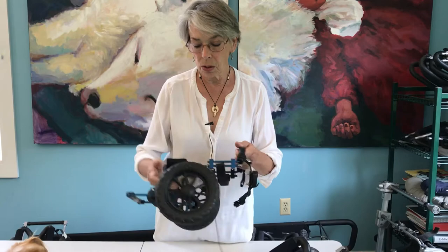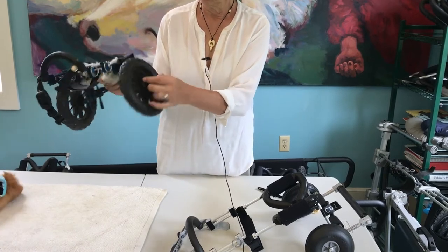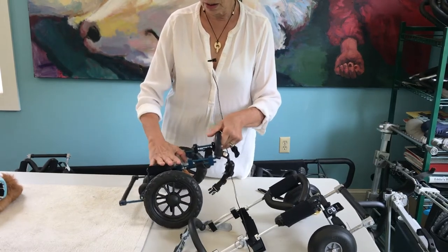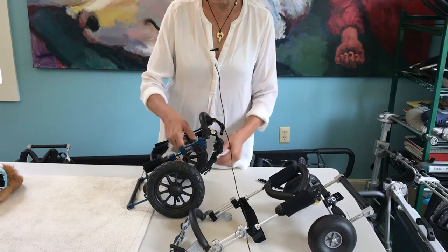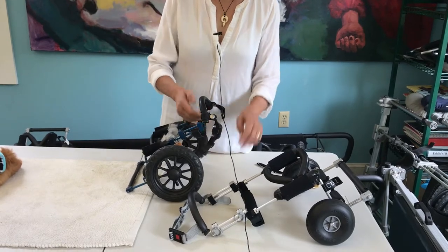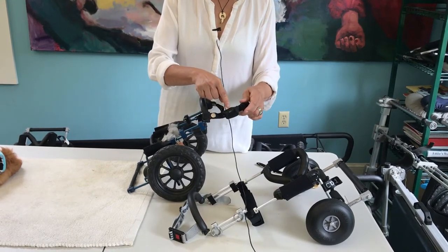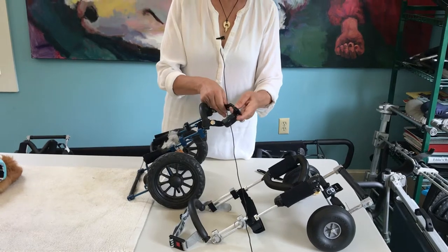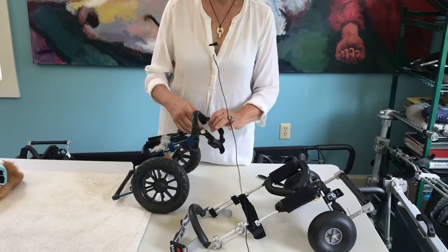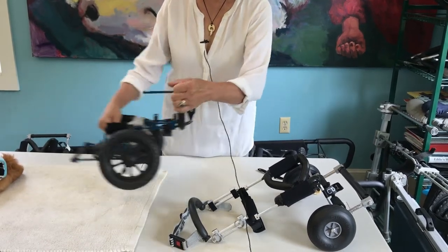You can see that the wheels of this cart are moved forward — the center of the wheel is even with the front of the saddle. The weight of his rump behind the wheels makes the cart rise over his shoulder blades, and this support strap is what keeps the yoke in place so that the cart is level without putting any additional pressure on his front legs. Finch is so fast in his cart that I cannot trust him in the yard, hence the invisible fence collar. This is a neutral balanced cart.